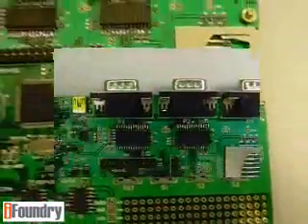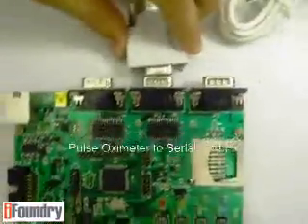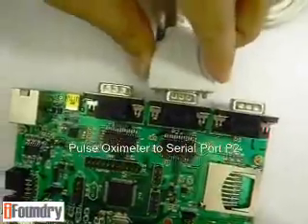Now let's connect the Pulse Oximeter to the second serial port. Make sure that the connection is tight and secure.